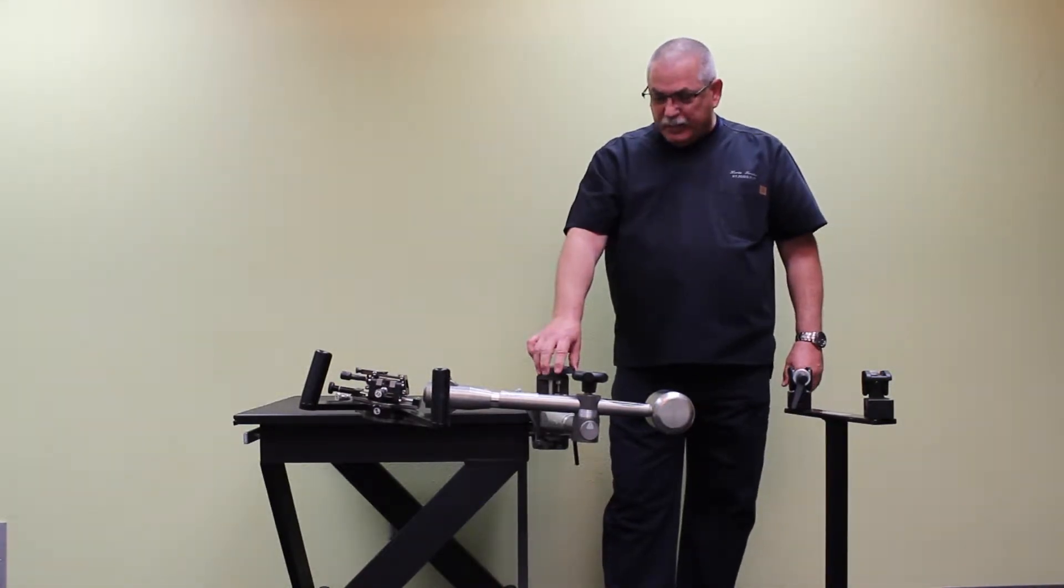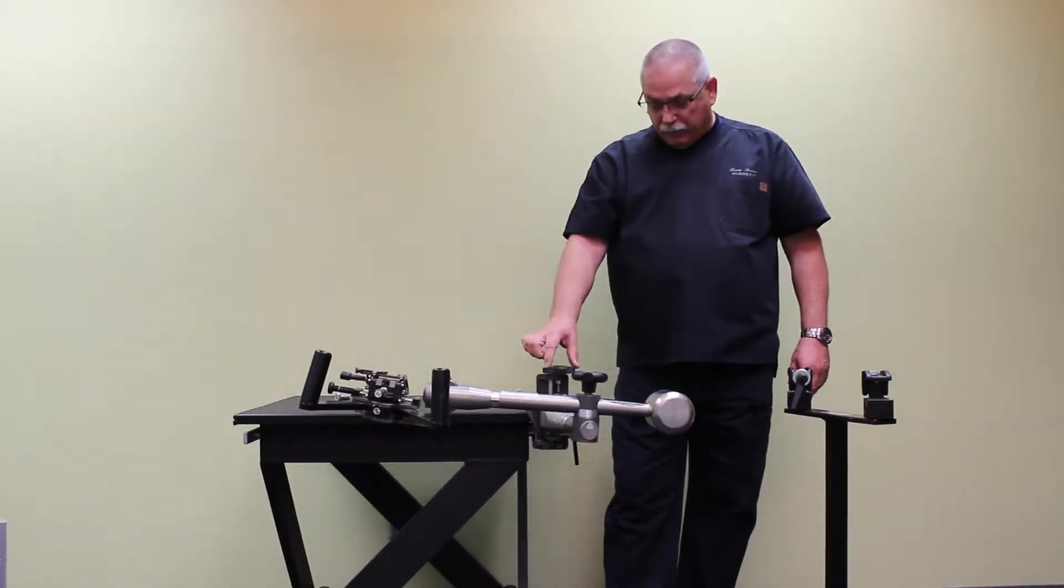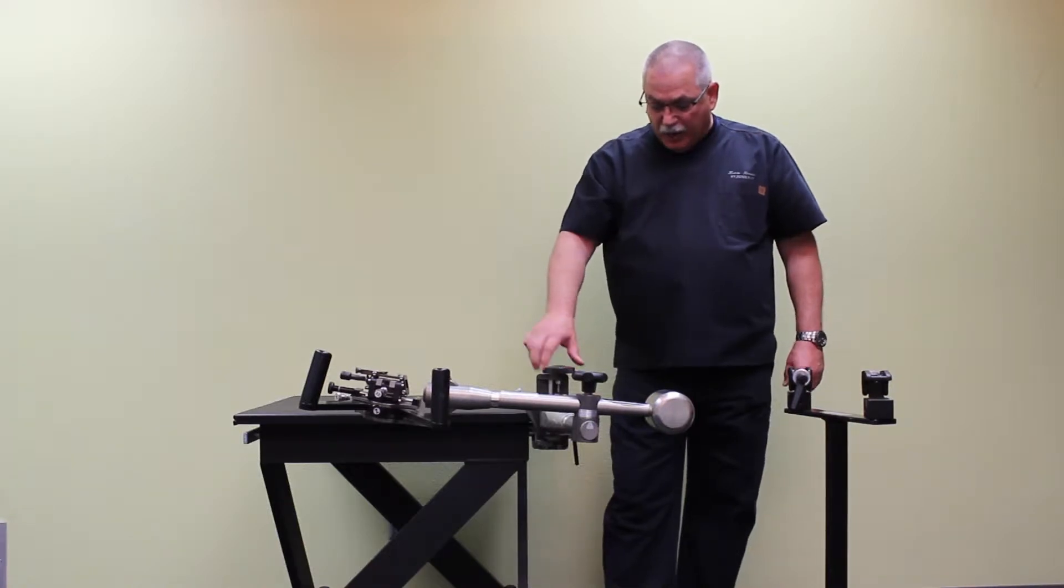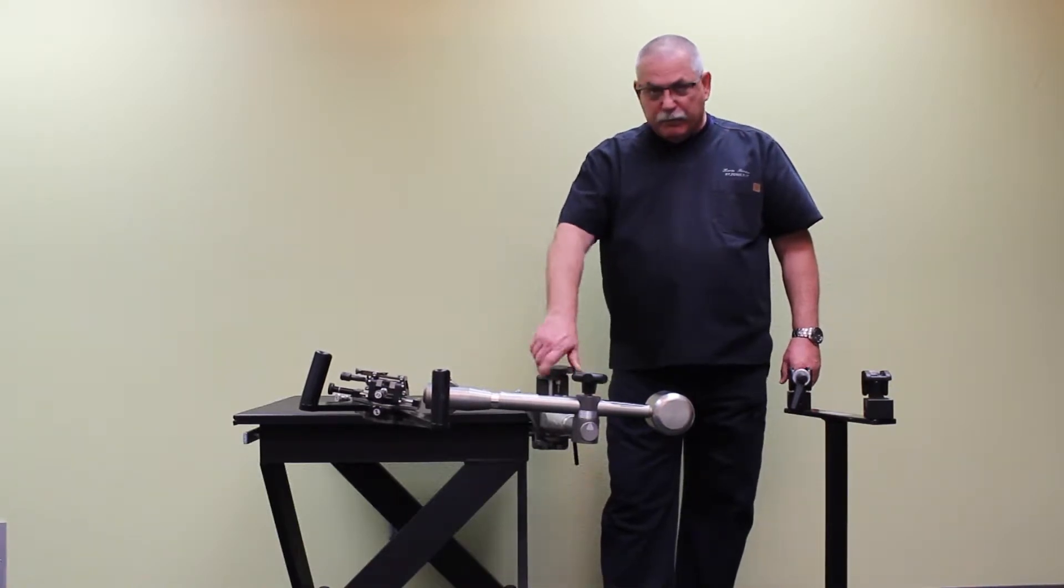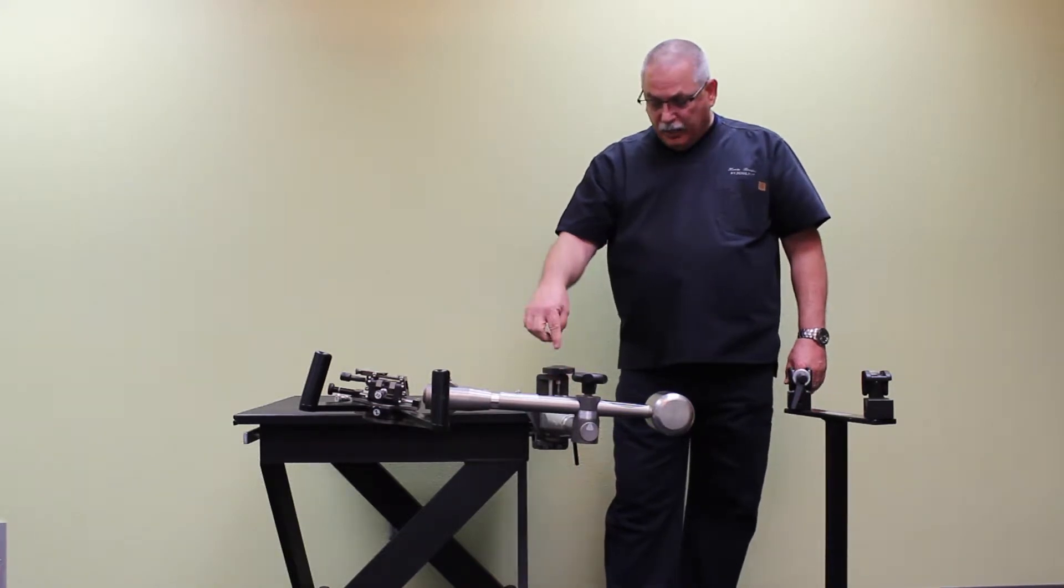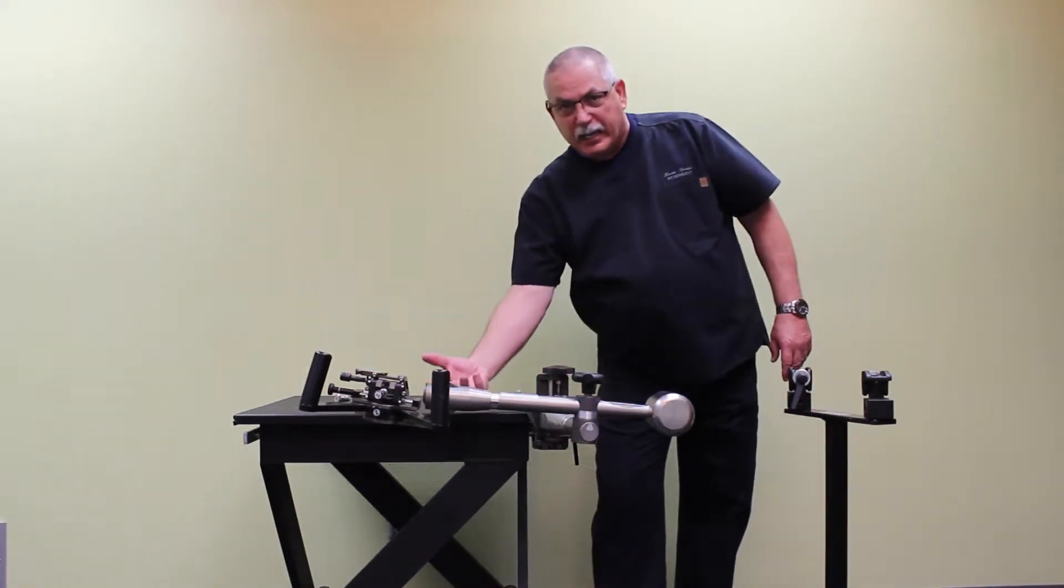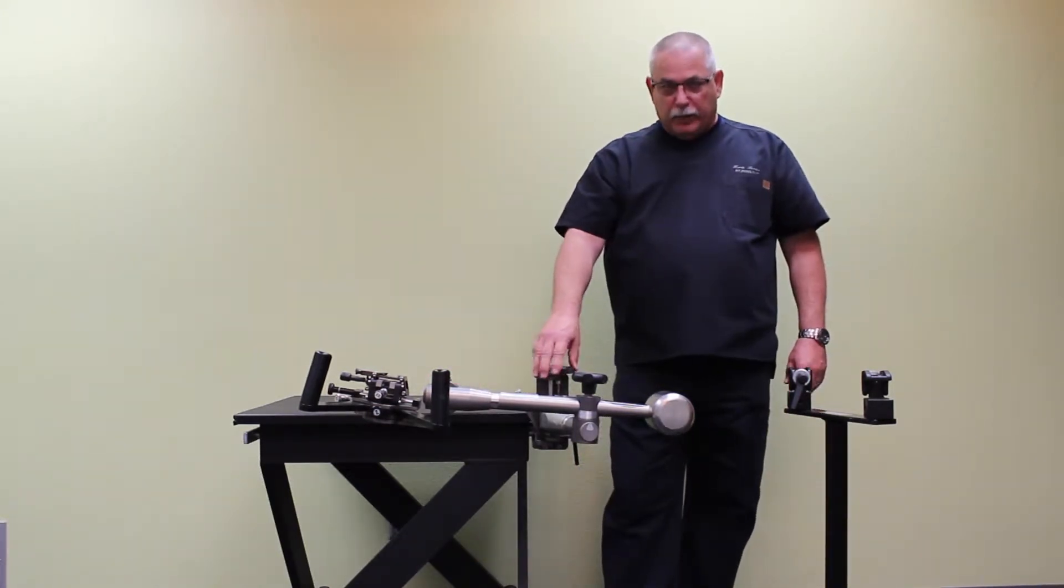Before we're done, I just wanted to point out some of the differences in the LP and the micro touch. This knob corresponds to the vertical movement of the stabilizer. This Y knob is actually underneath if you're using the dual rail mounted system.